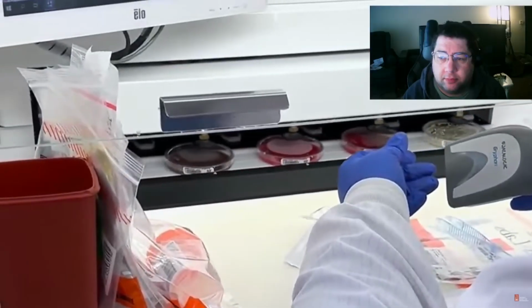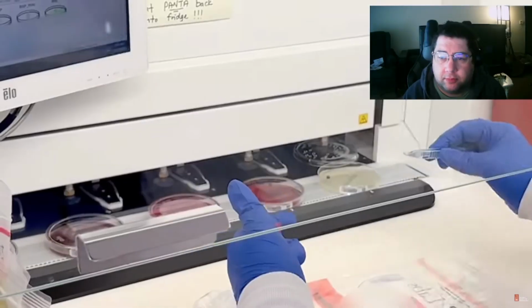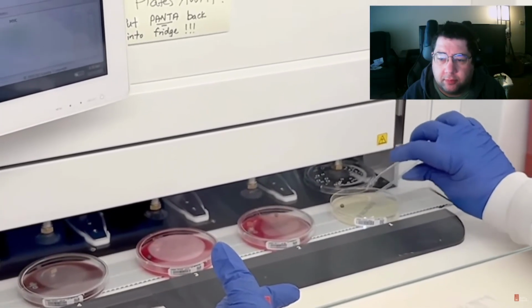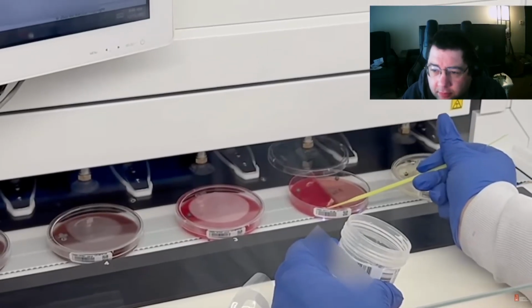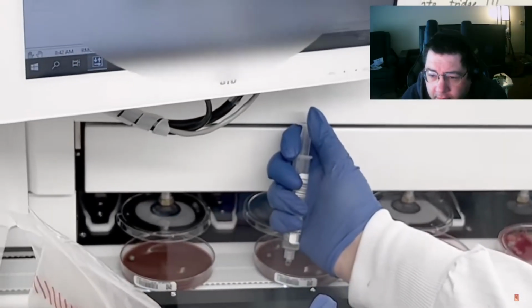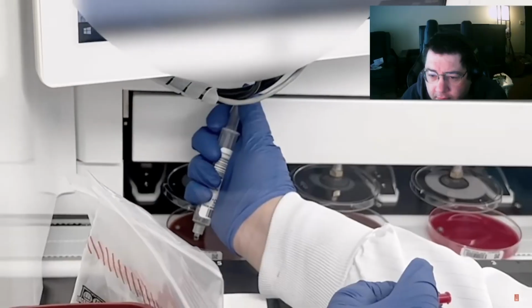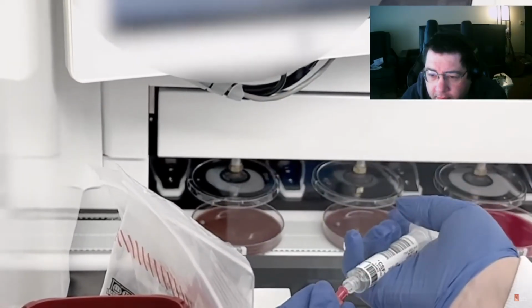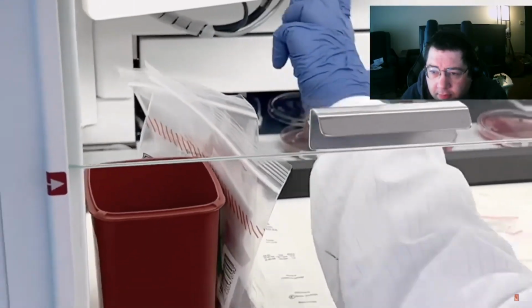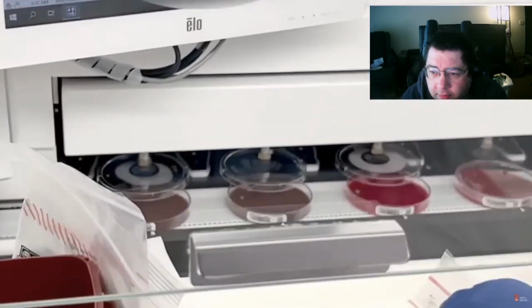Other specimen types are set up semi-automatically. Various agar plates may be used to optimize growth of the potential pathogens within the sample. Each agar plate contains the nutrients that different bacteria need to grow, and the type of nutrient agar that the specimen is cultured on depends on the body site that the specimen is collected from. Here we observe a technologist inoculating various patient samples onto agar plates.